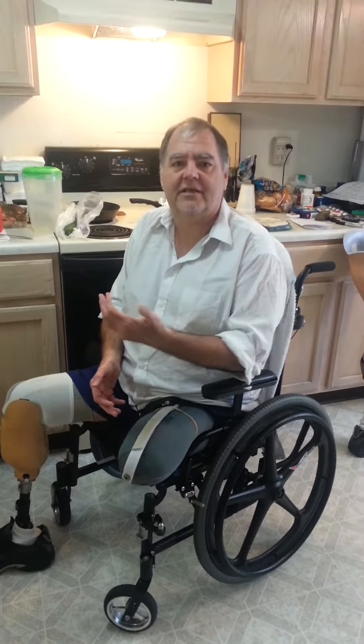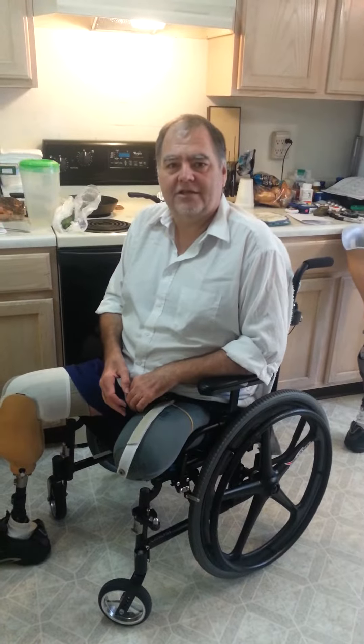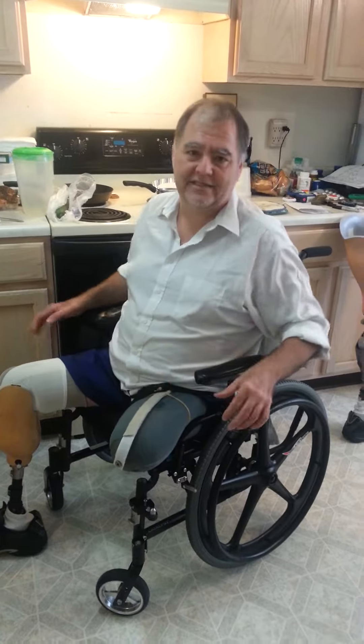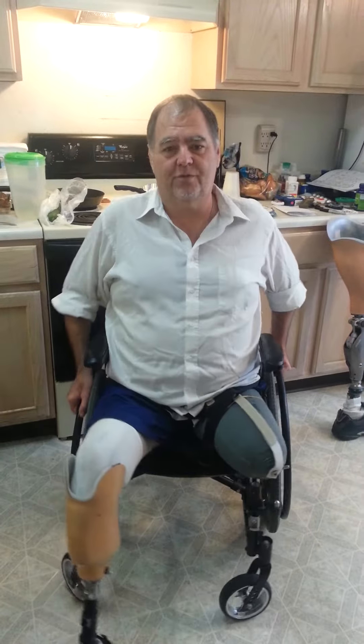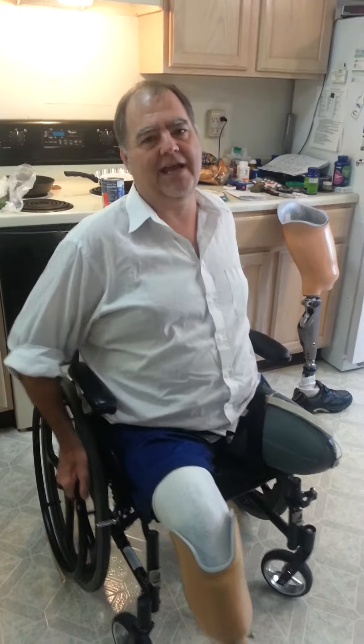This was so I can carry something to drink with me. As you'll find out pretty quick, it is difficult to carry anything when you're driving a wheelchair, especially when you're brand new at it because it takes two hands.